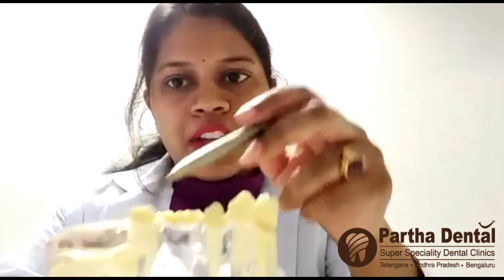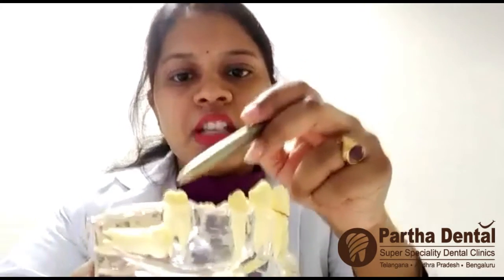I would like to show some models with which you can understand better. This is a model wherein you don't have a tooth here — if you can make out, there is no tooth here. So we have taken the support of adjacent teeth, shaved those teeth, and on top of them we have placed crowns. These are the caps, and this is called a fixed partial denture, generally known as a bridge system.